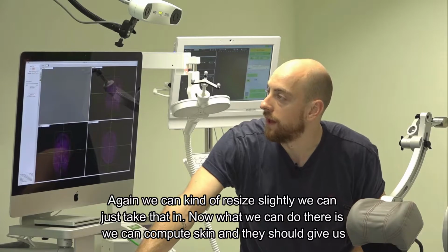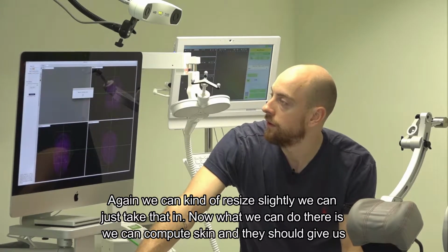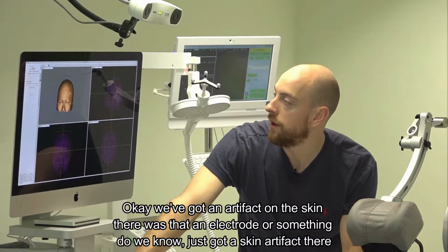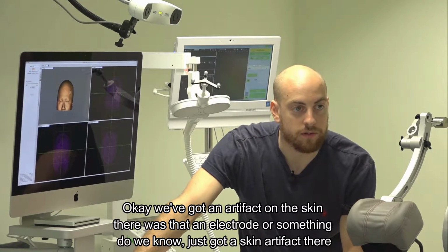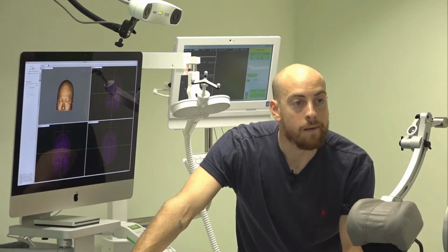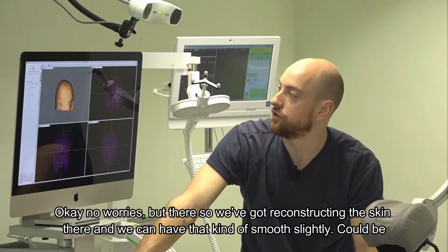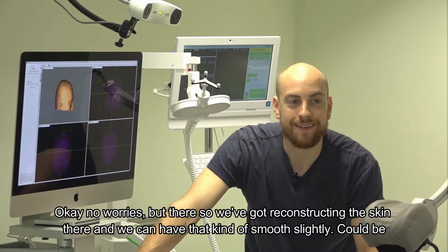Now what we can do there is compute skin, and this should give us, okay. So we've got an artifact on the skin there. Was that an electrode or something, do we know? Just got a skin artifact there. Okay, no worries. But there, we've got a reconstruction of the skin there, and we can have that smooth slightly. Glasses? Could be.